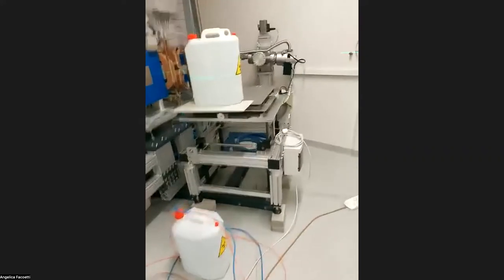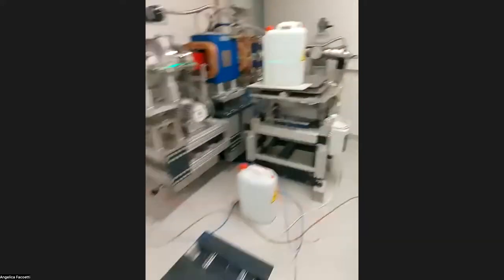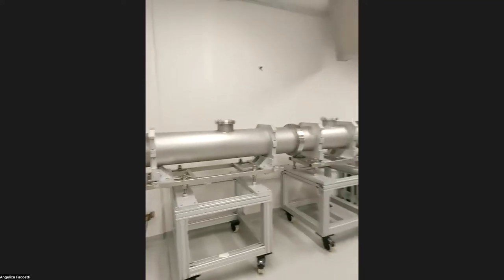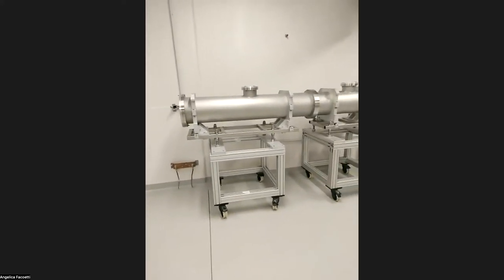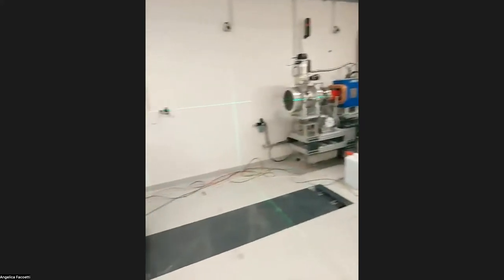You have to remove the table, of course, but then you can move the scanning magnets to their position and use isocenter 2. Or you can install one or two of these tubes and bring the beam to isocenter 3 and 4, depending on the needs in scanning field and so on.